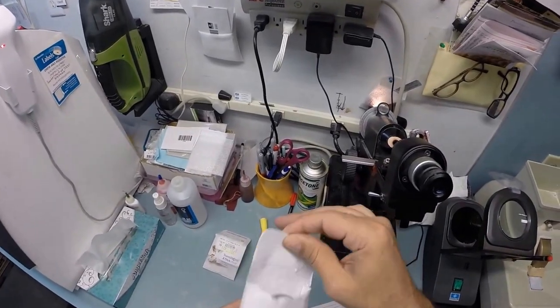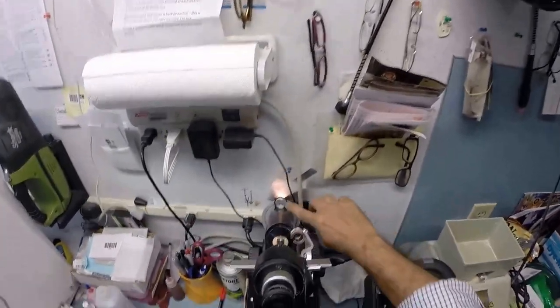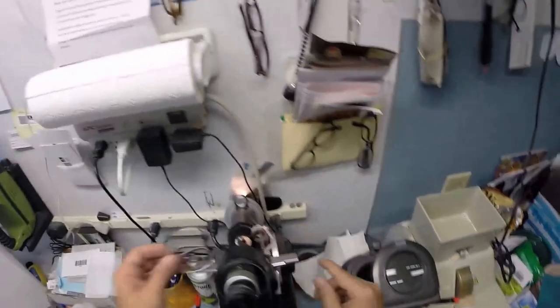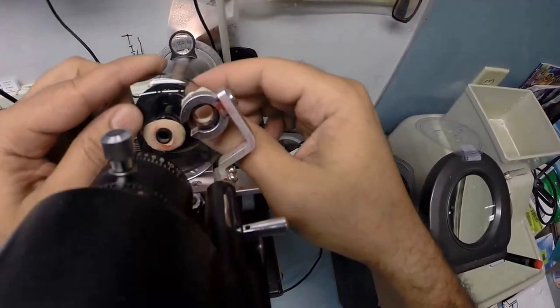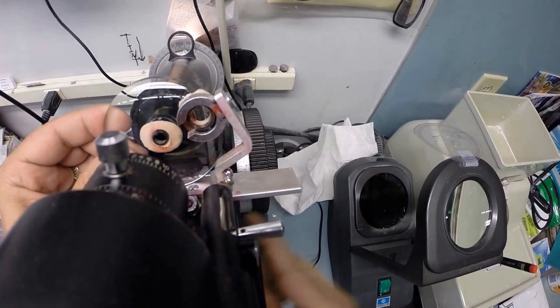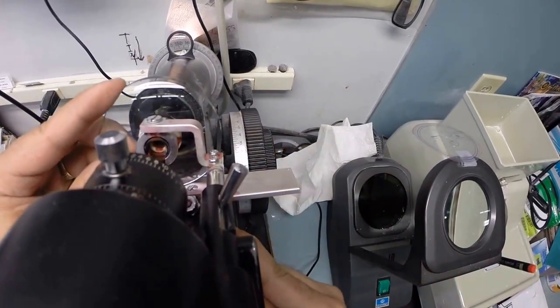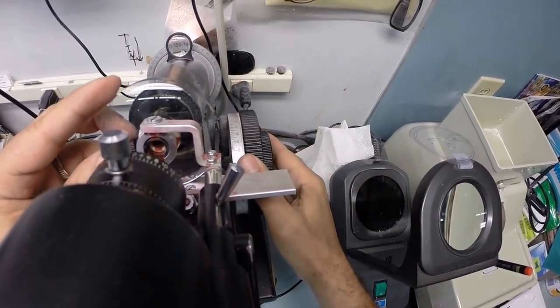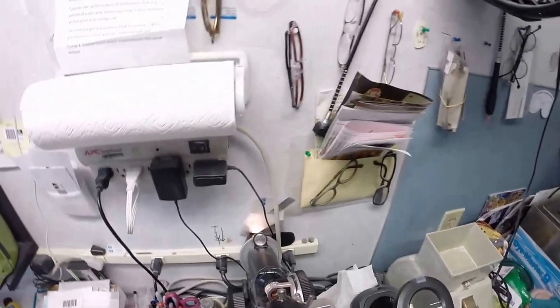Let me take your left lens out of the protective sleeve. I'm on 155. Minus 2.25. Put the lens in, rotate until the sphere power comes in clearly, find the optical center of your lens, check your astigmatism correction of which you only have one step.